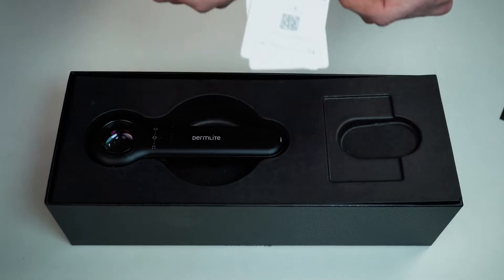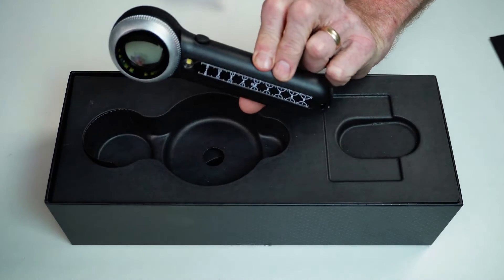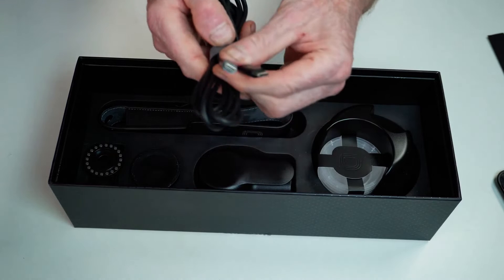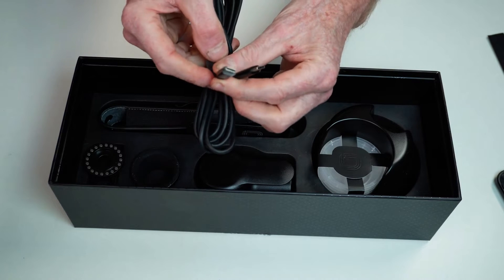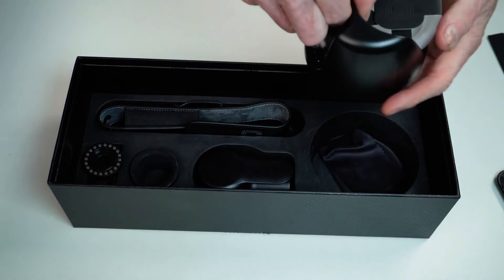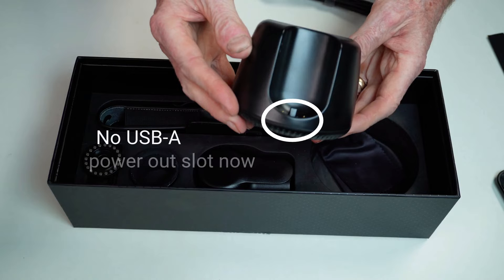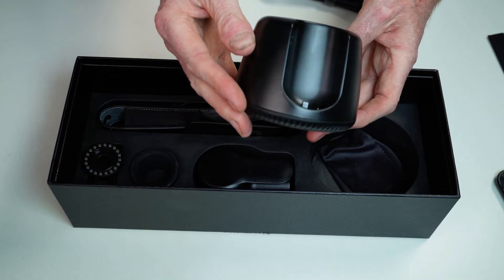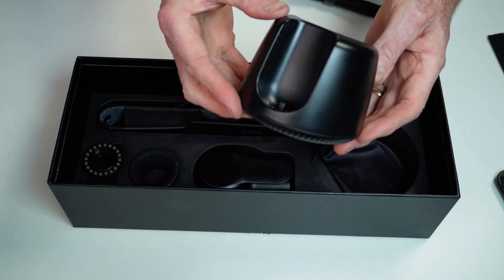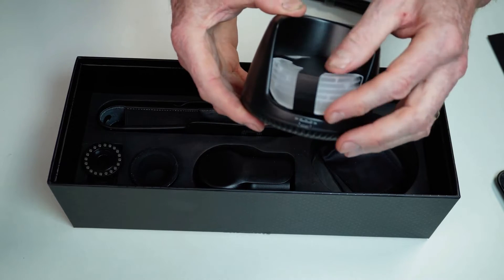There's a five-year dermascopic and one-year battery warranty. There's the DL5 itself. Lifting the inner divider, you find a charging station. There's one USB-C to USB-C cable. A plug isn't included, so make sure you have one. In the manual, it mentions a USB-A power slot on the front of the charging station, but mine didn't have one. Reading comments online, it seems some people thought the USB-A slot was to power the charging station itself, and it caused confusion.